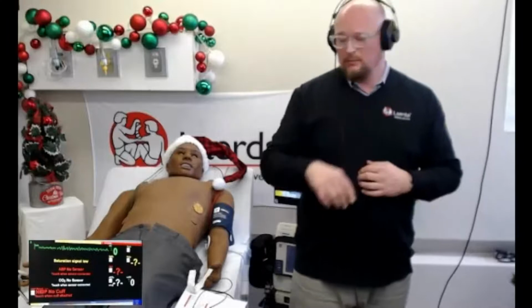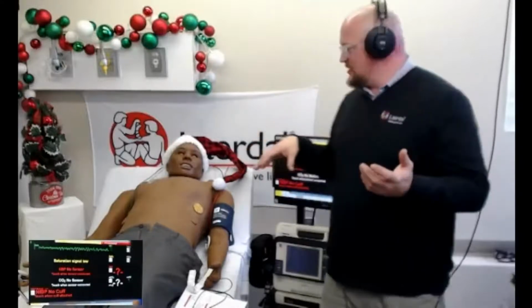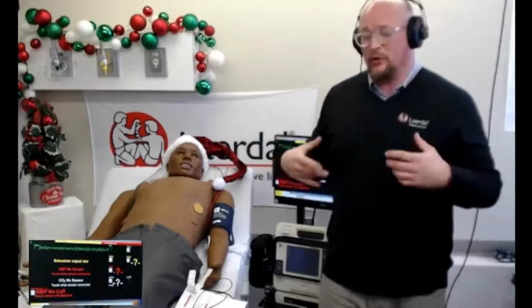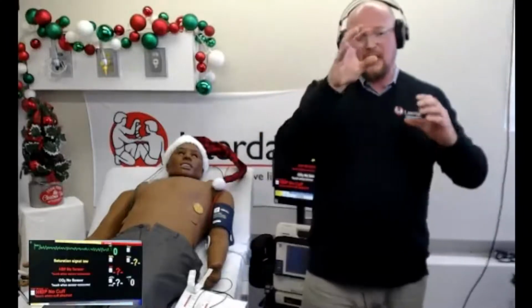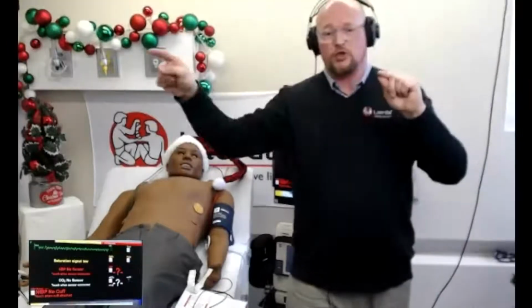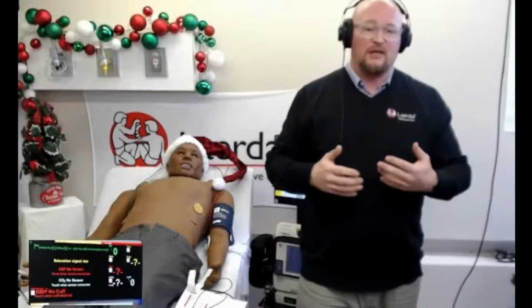I would just actually build buttons that say, okay, I'm giving so much, especially with SimMan 3G+. Let's say I'm giving a drug like succinylcholine that has numerical vital changes, including respirations going to 0, but we can also do things like fasciculations with seizures. We can design a button that you push that says, okay, I'm giving succinylcholine, and that creates a trend as well as a physical property trend. So we can do that as a handler.